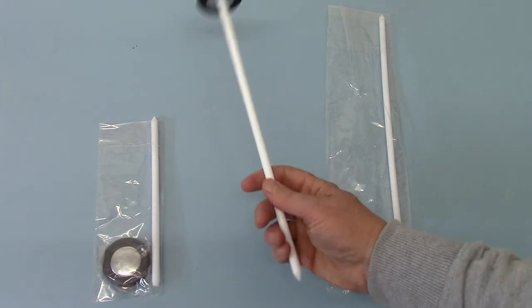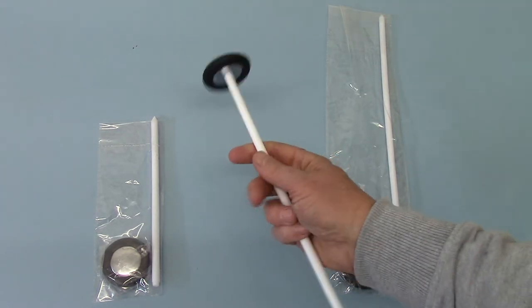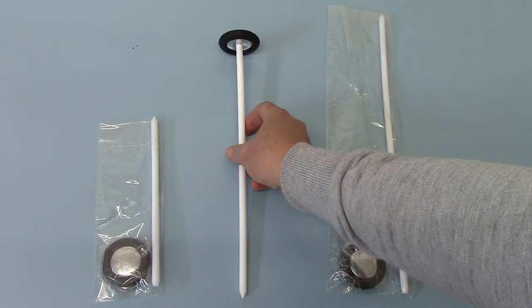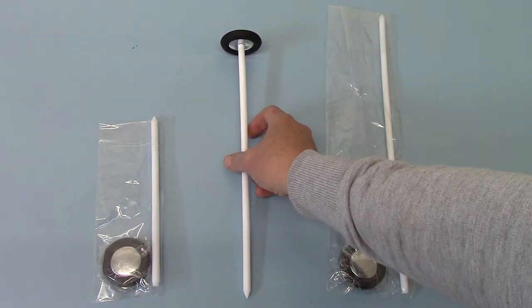So these are a nice, balanced handle. Good hammerhead for eliciting a good reflex with these. Nice and robust, very well constructed.